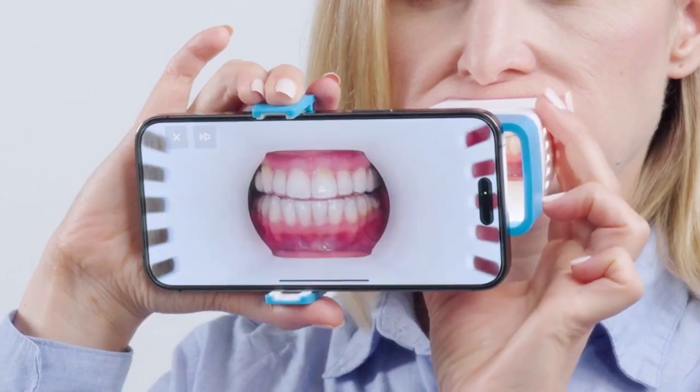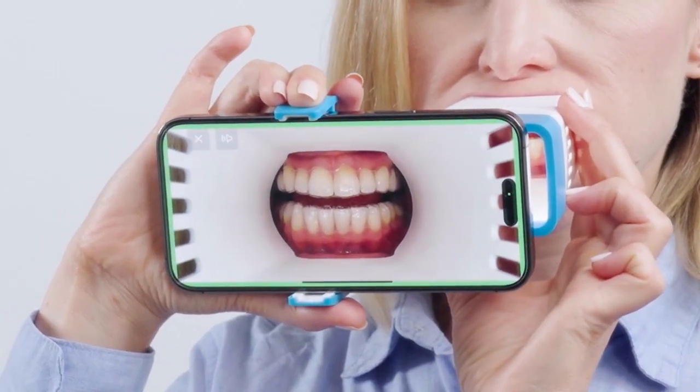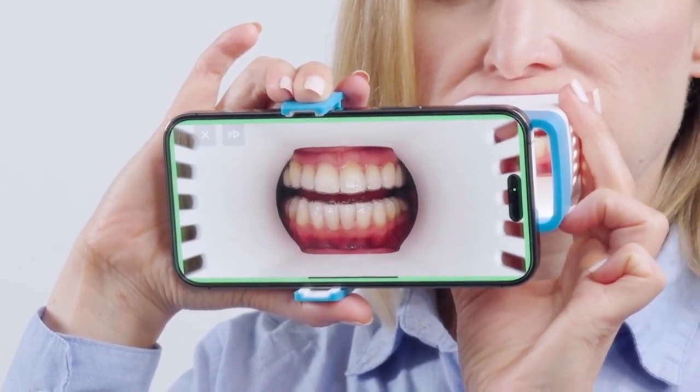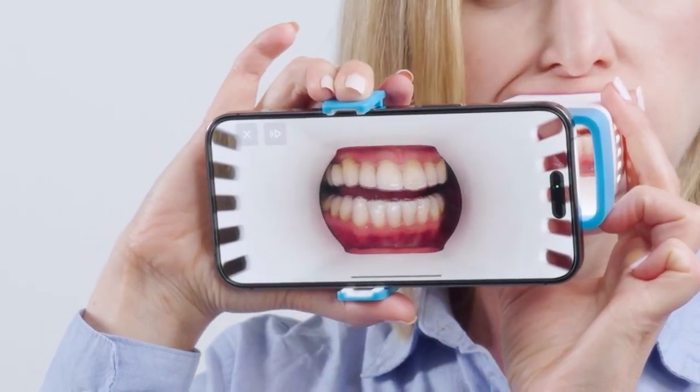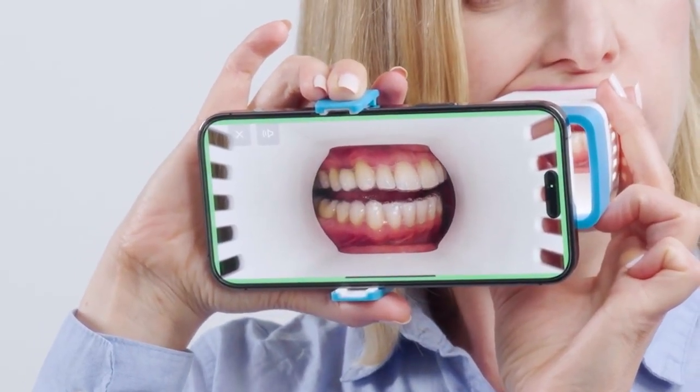Place the lens in your mouth by inserting the contour end inside the corner of the mouth and lips. Stretch your lips to place the outer side of the device inside your mouth. Then follow the prompts in the app to take pictures of your teeth. Refer to the My Invisalign app for photo taking instructions. The app will guide you through each photo using voice guidance, and once you have correctly aligned your bite, the camera will automatically capture the photo.